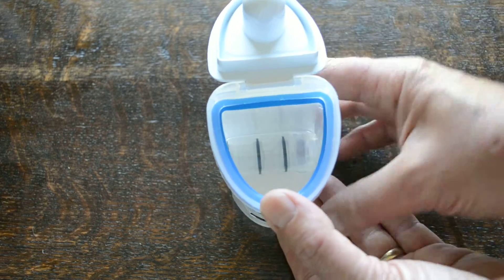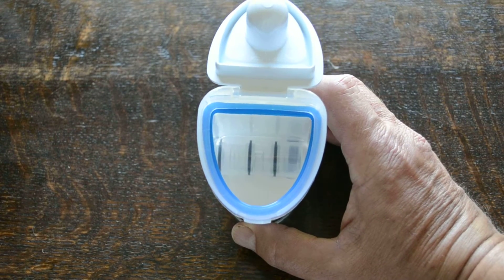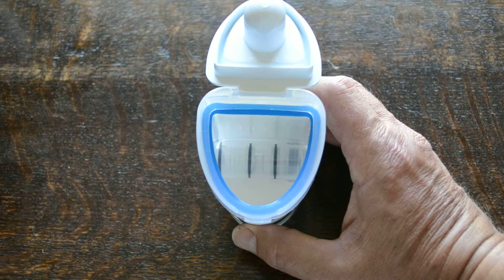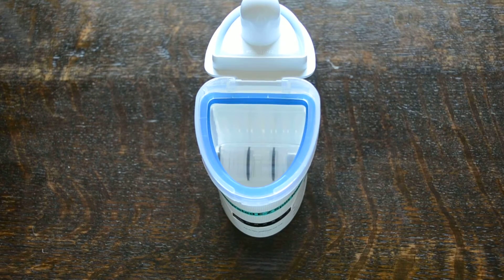The chamber in the base is the key element of this design and what gives it the edge over traditional or straightforward cup drug tests, where the drug test membranes are basically just placed around the circumference of the collection chamber.